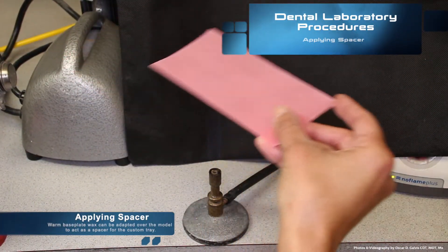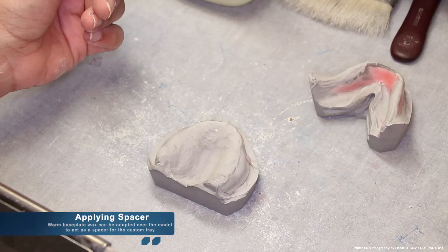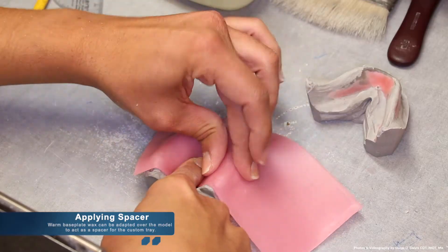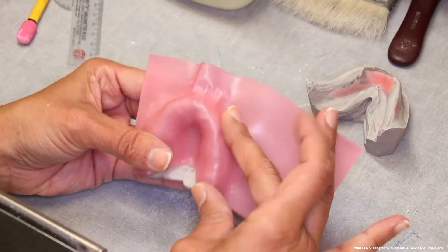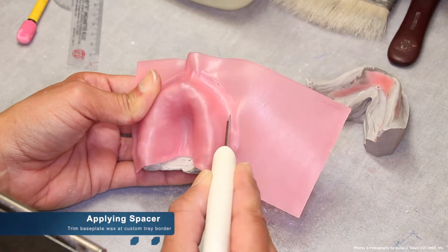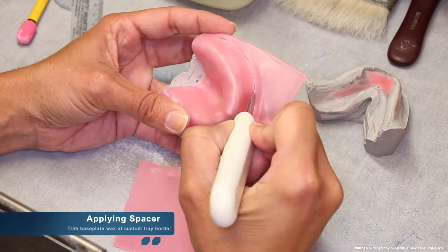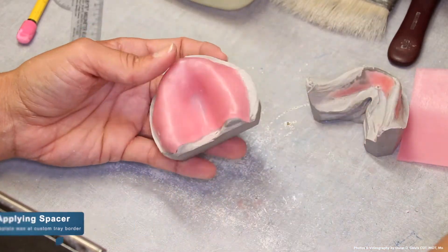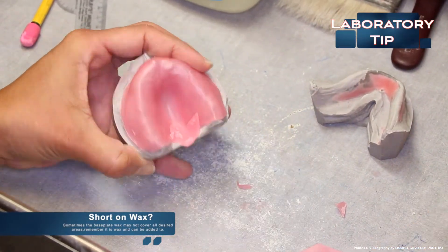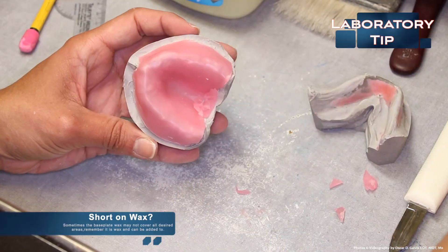Once all undercuts have been blocked out, we can now apply our spacer. We do this by warming base plate wax and it can be adapted over the model to act as a spacer for the custom tray. Once the spacer has been adapted to the model properly, you can trim the base plate wax at the custom tray border that was marked previously in pencil. If this is your first time working with base plate wax and you may not have covered all anatomical areas necessary to fabricate the custom tray, have no fear. Remember that wax can always be added and removed.